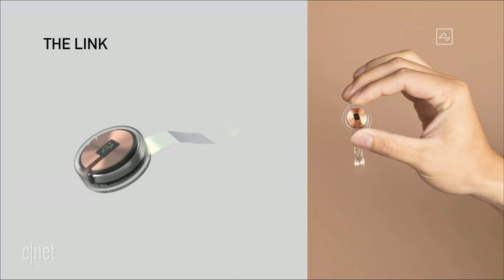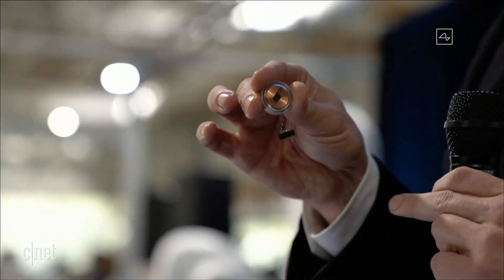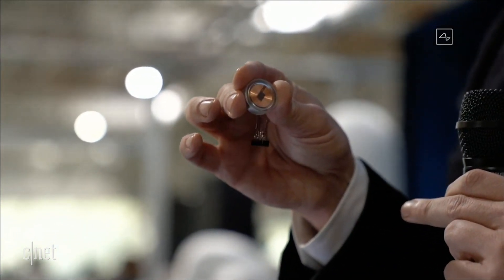This is sort of what it looks like — this is that little device. That thing at the bottom is just to hold the threads in place, because they're just like little fine wires.